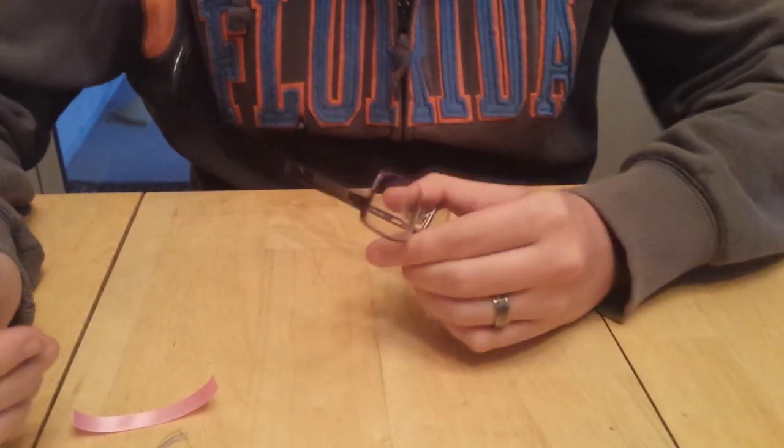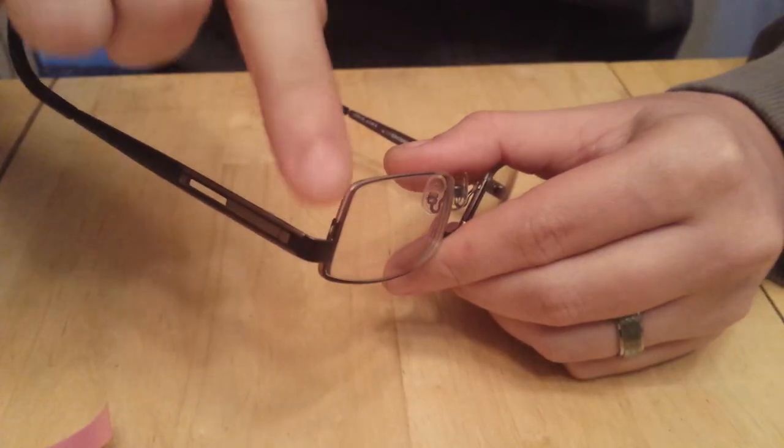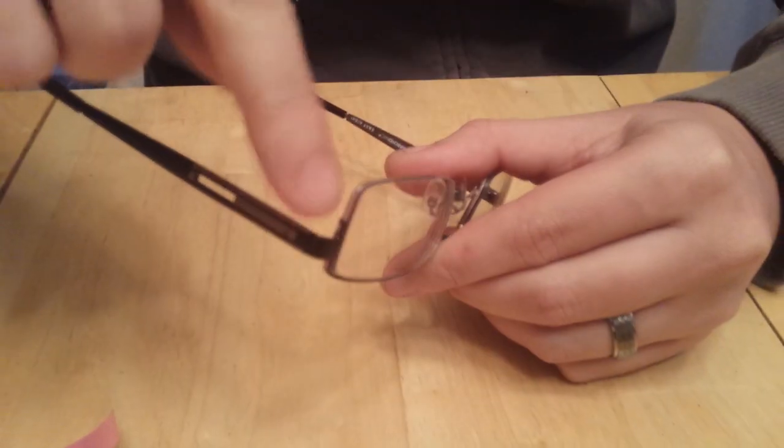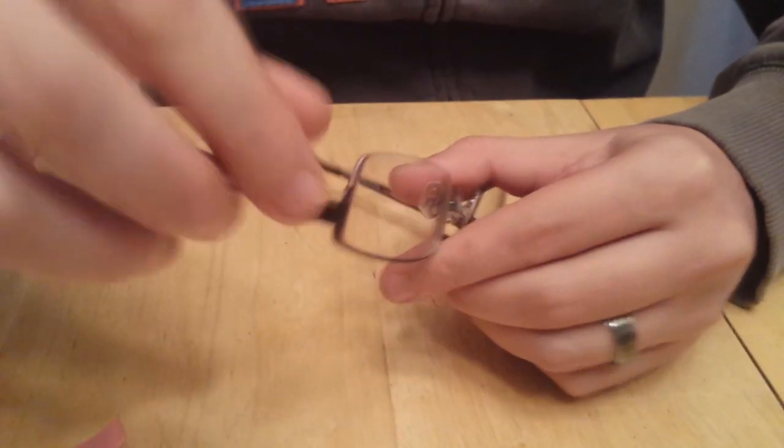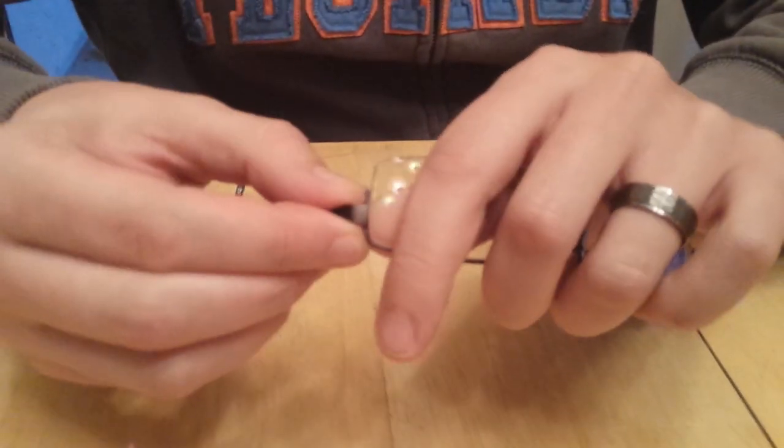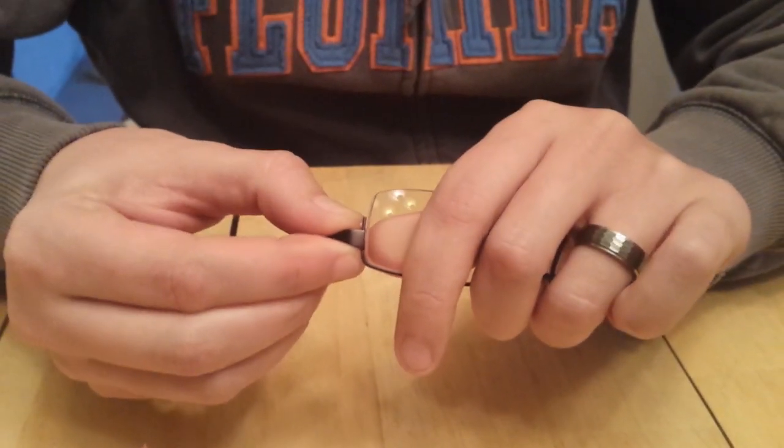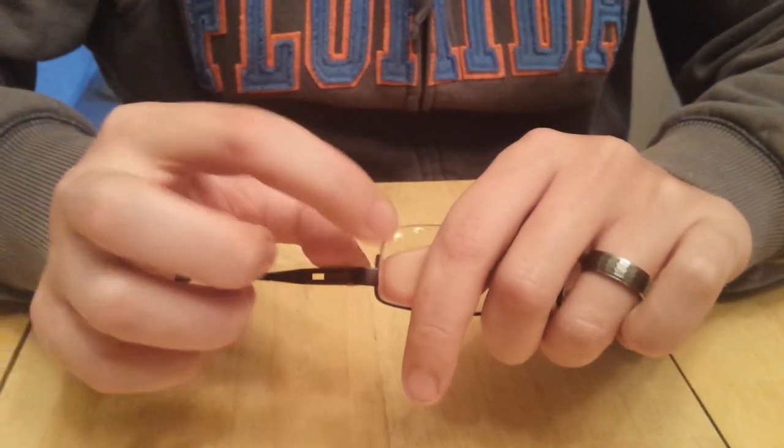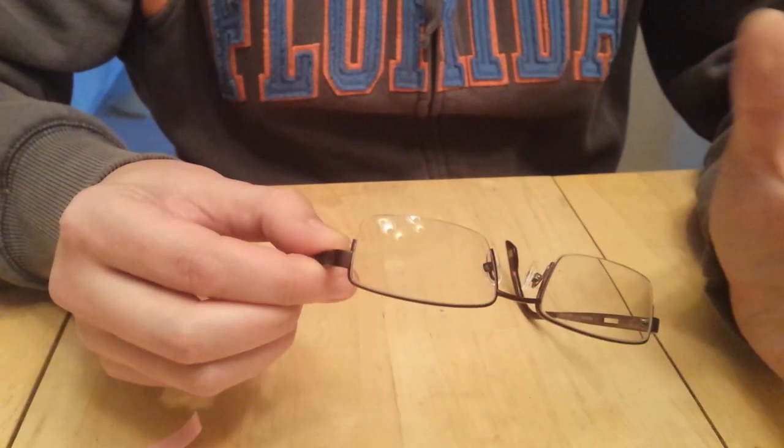In order to replace the lenses in your glasses, there's a filament at the bottom that you need to get to. One of the best ways to do that is to get into the gap between the frame and your lens.